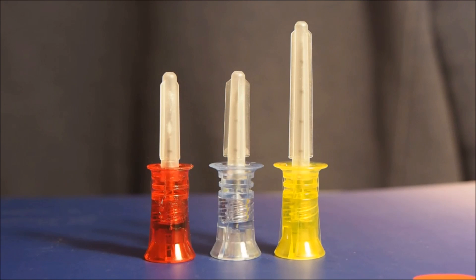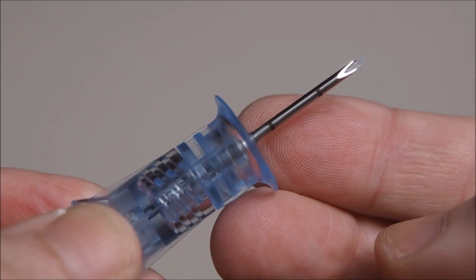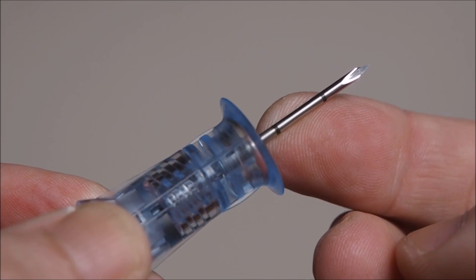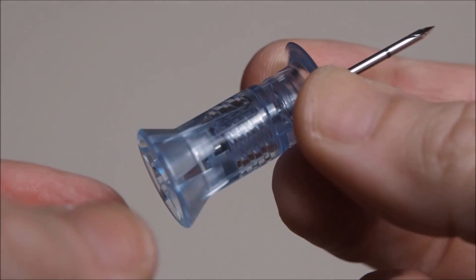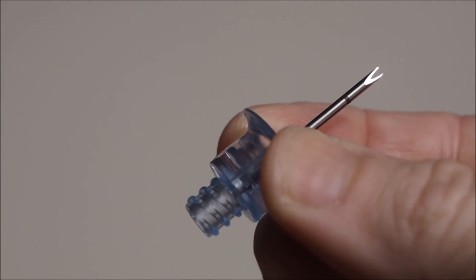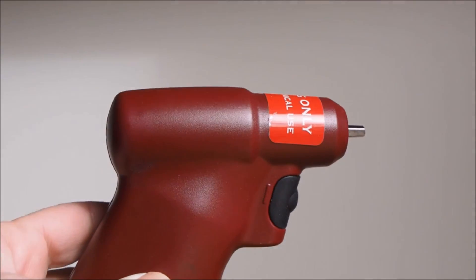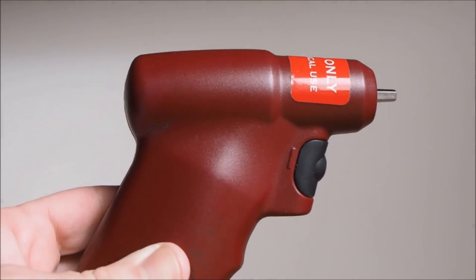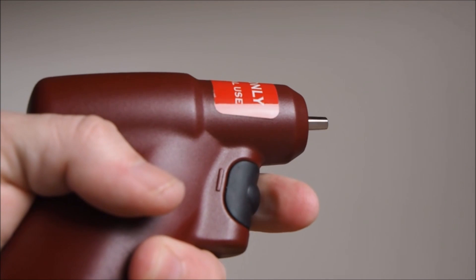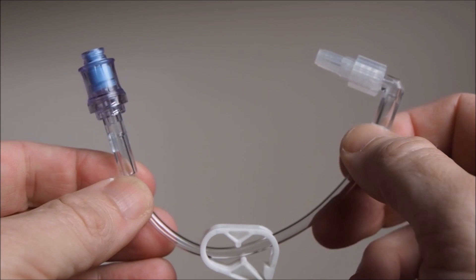There are three sizes of needles for children, adults, and larger patients. Each needle has one or more black bands around its shaft — I'll talk more about those later. The needle itself has two parts: an inner sharp that drills into the bone and is then removed, and an outer sheath that remains inside the patient and provides a hollow lumen. The drill handset is light, comfortable to hold, and has just one button. A gentle squeeze on the trigger drives the spindle, and it does have quite a bit of torque. Finally, there's a bit of tubing with luer lock connectors at both ends.